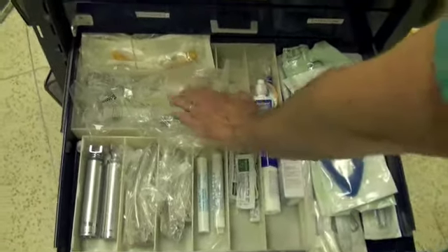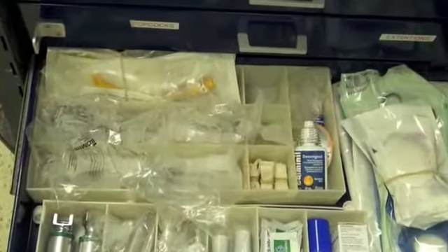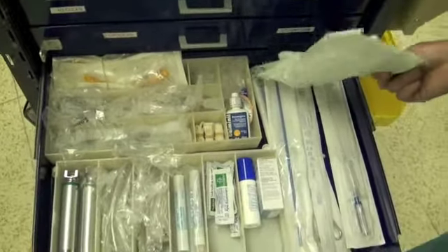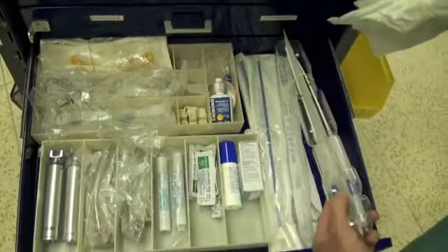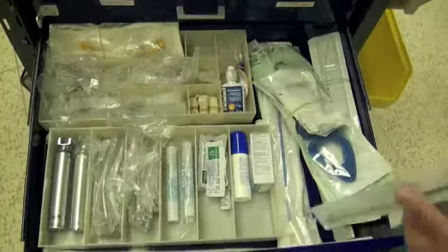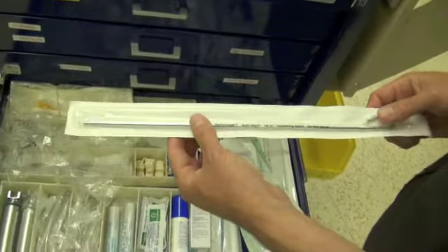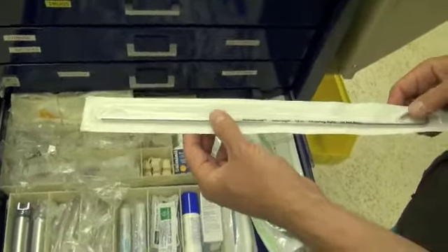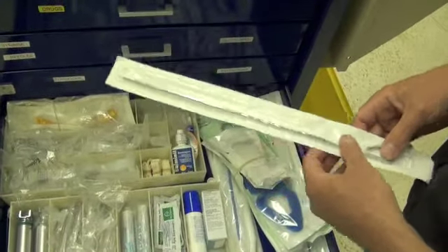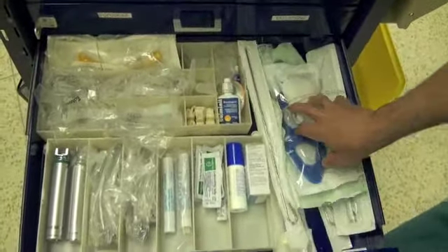We have oropharyngeal airways at the back. We have nasopharyngeal airways. We have, off to the right, eye padding. We have lidojet sprays that put lidocaine down the trachea. And a very important piece of equipment here, we have a stylet. So a stylet is used to get an endotracheal tube into a hockey stick position for those instances where during laryngoscopy we are unable to get the tube around the corner under the epiglottis and into the trachea.